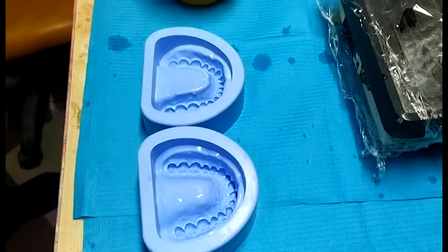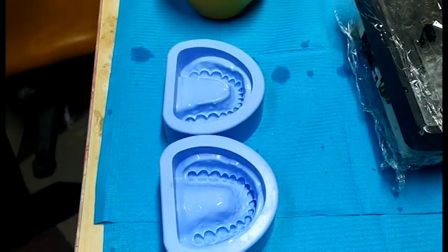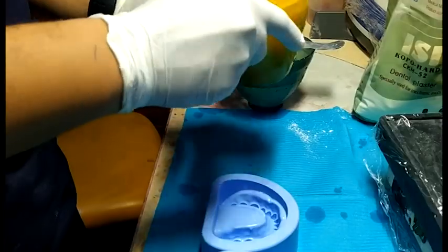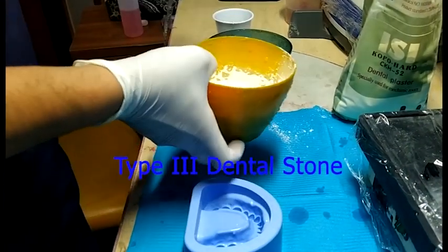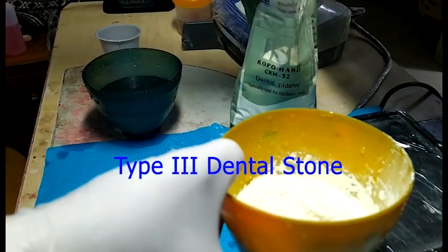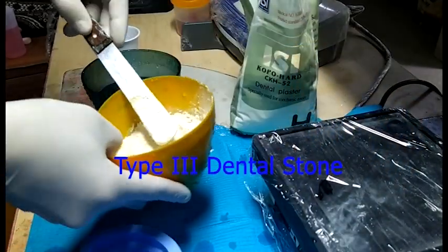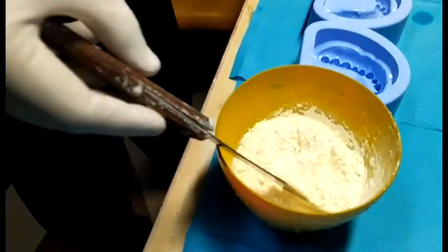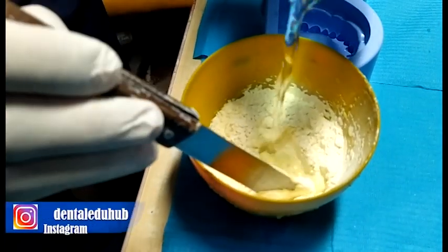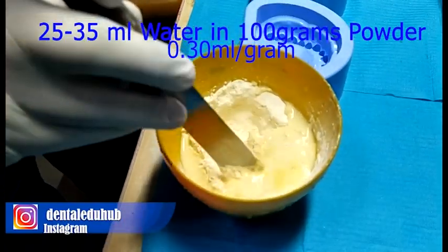The molds must be clean and there must be no scratches in the rubber molds or in the rubber bowl. This is a Type 3 dental plaster known as dental stone that we will use for producing dental models in this video. The dental stone is mixed with a small quantity of water with the help of a curved dental spatula.